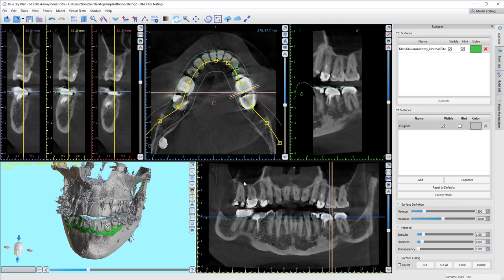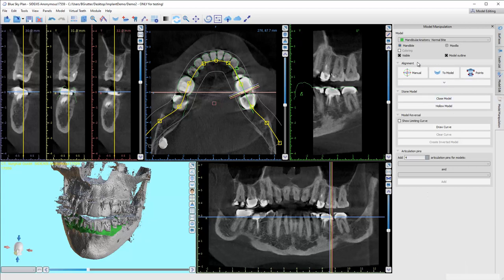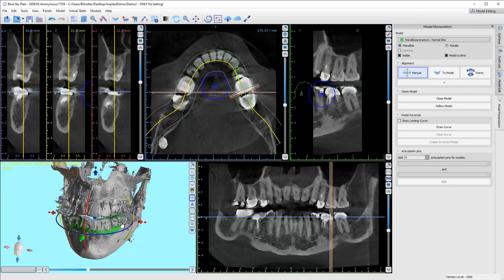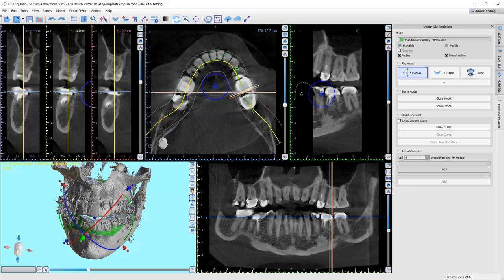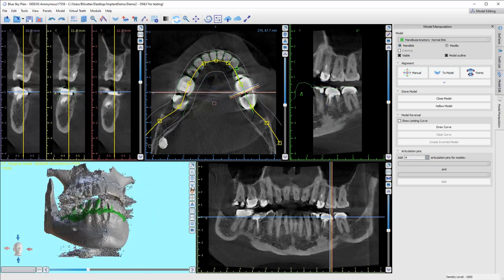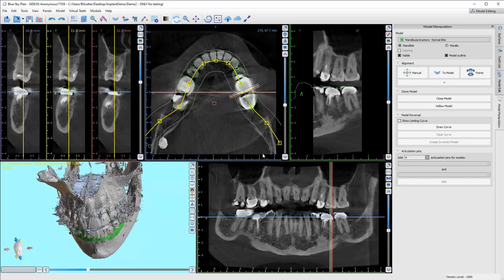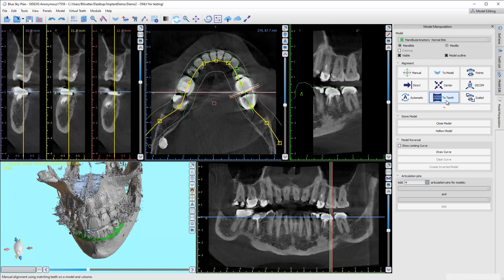This worked, but what if it doesn't? I didn't make this video to show you that the software can automatically stitch — I want to show you how to do it if it doesn't work. We're going to go over here to Model Manipulation, and up in this area there's Alignment. There are different alignment workflows to choose from. Manual means you're literally just tipping and rotating by eyeball — there are times when I do this — but I'm going to turn it off. That's your Hail Mary last resort. Most of the time we're using Automatic.